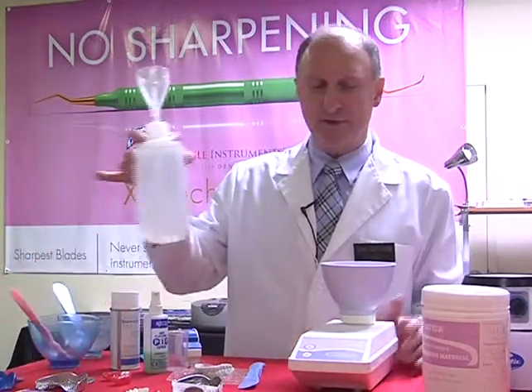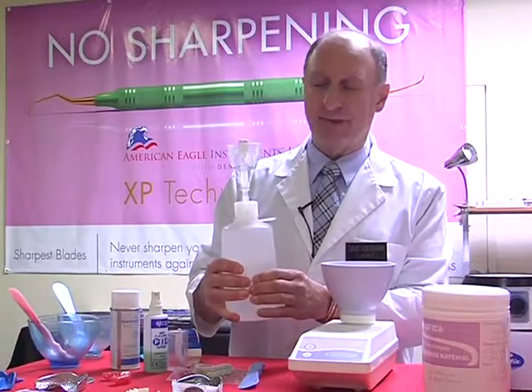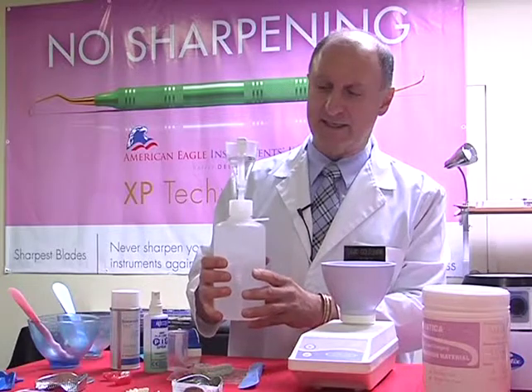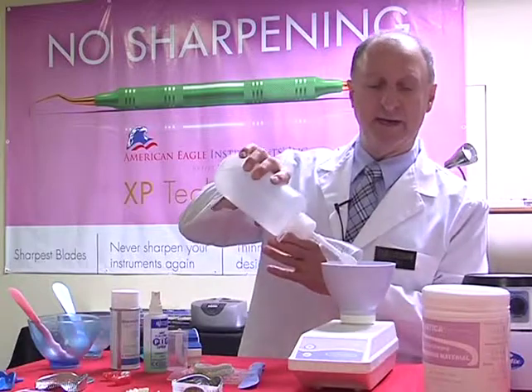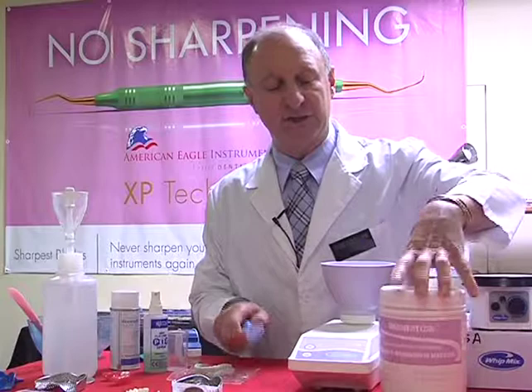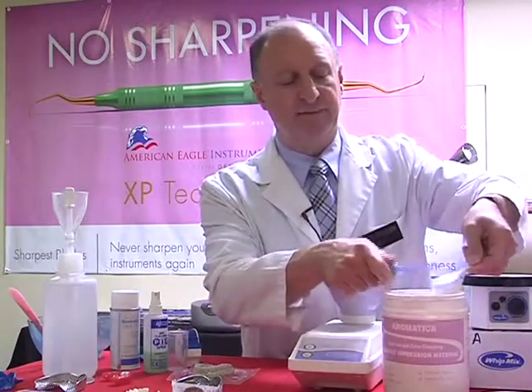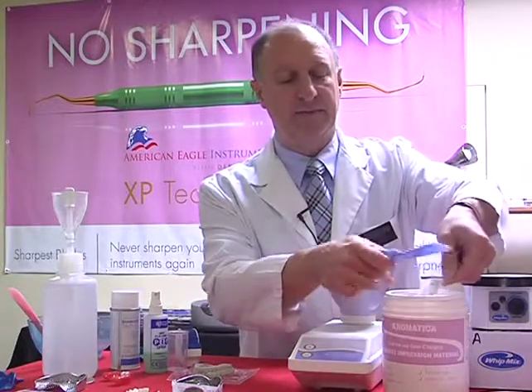So I'm going to measure off my water. Again, I'm going to use this little H2O dispenser. And these are things you can pick up from your local supply company. This is around $29, just to give you an idea. So as I squeeze this, it's going to measure off our 2 levels of water, which I'm putting directly into our mixing bowl. I'm going to do the same thing again for our alginate. So packing our scoop tightly, sliding off, and then the same thing, doubling that up twice.